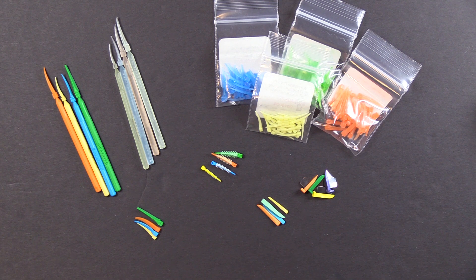As you can see, we've got a lot of different kinds of wedges here at Garrison Dental. One of the very first questions people ask is, 'You've got six, seven different kinds of wedges — which wedge should I use?' My answer is quite simple: it's the one that works best in your hand. You may want to try a couple of them to see which one works best for you.